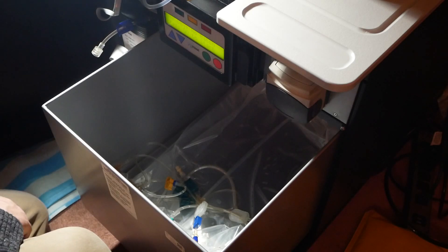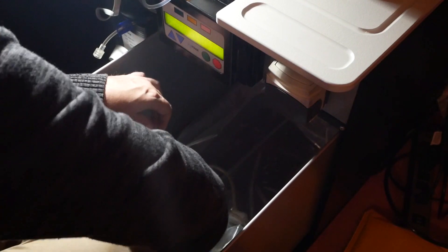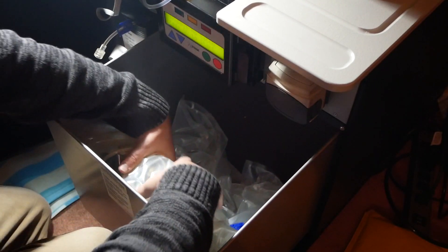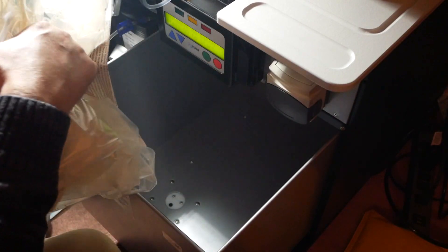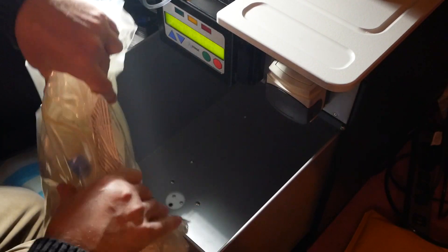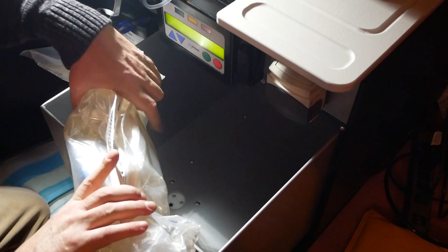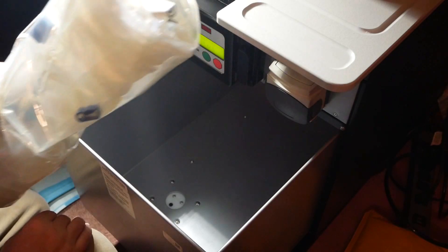This little piece still has one blue clamp - it should be clamped and attached to the pack, and that stays there. At this point nothing is connecting the sack to the machine at all. I reach down in here, bring it forward and roll it up. It's fairly dry and compact - takes up a little space in the trash but once rolled tight it's easy to manage.